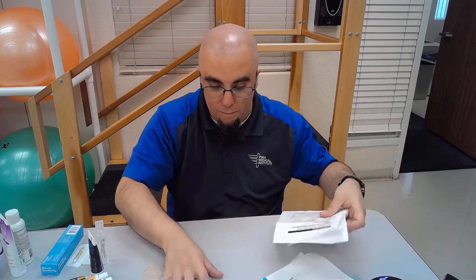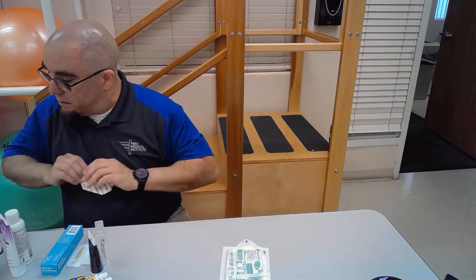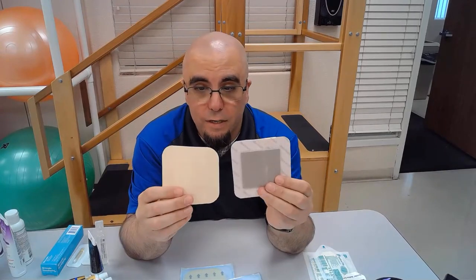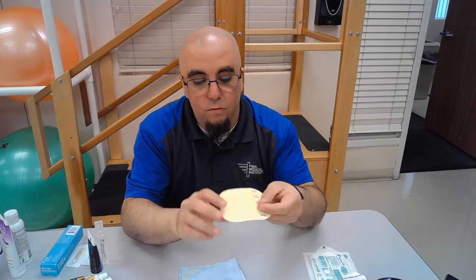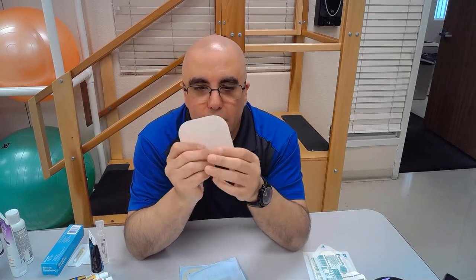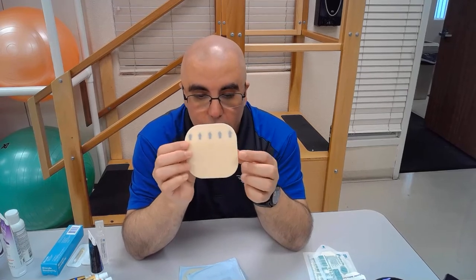You can also use foam dressings on the sacrum for extra cushioning when you're worried about further skin breakdown. Moving to other common dressings — hydrocolloids are a bit thicker than traditional gauze. They form an impenetrable barrier, so if your patient is incontinent you can use a hydrocolloid over the wound to keep bacteria, fluids, fecal coliform, and other contaminants out of the wound area.